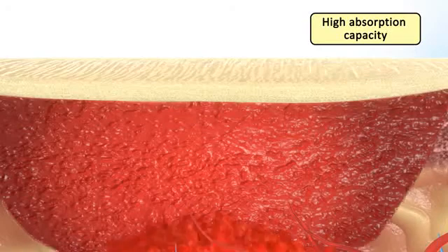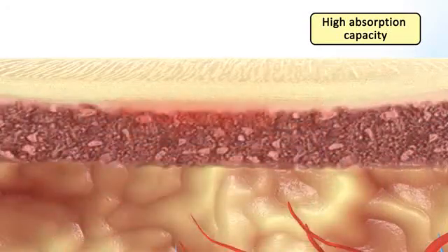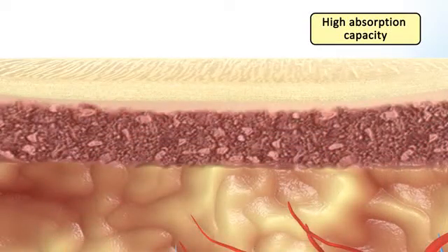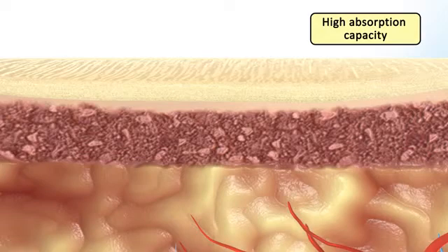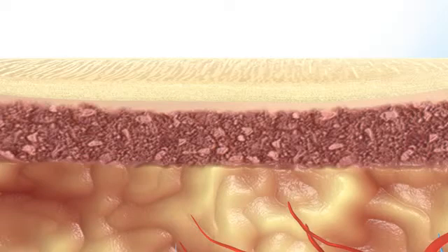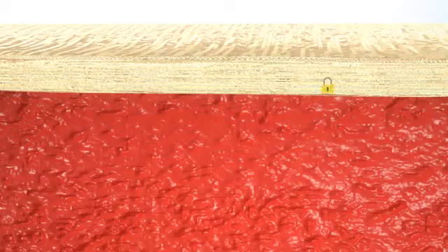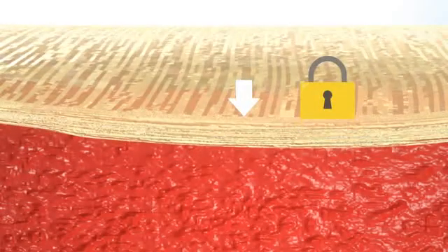Pharma-Algi F Carbon absorbs wound exudate due to gel formation. The dressing provides a moist micro-environment that promotes healing and formation of granulation tissue, and locks it inside the formed gel, preventing skin maceration.